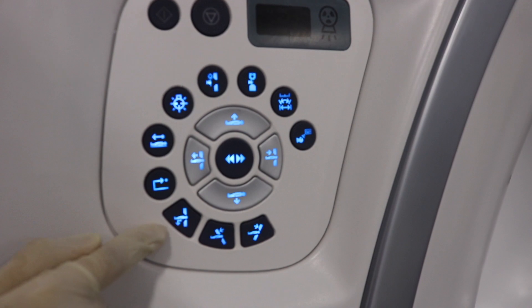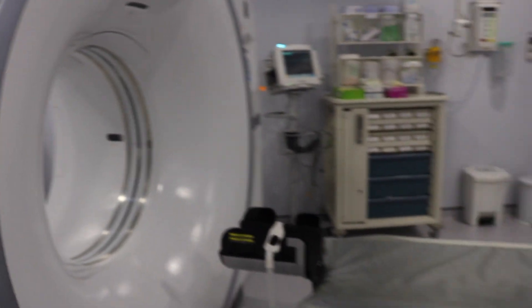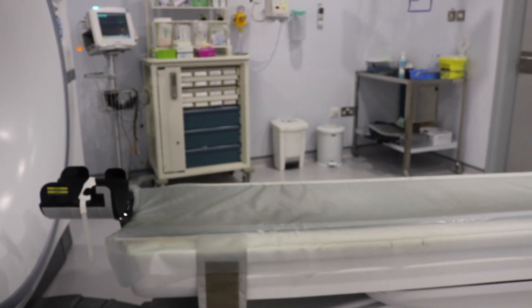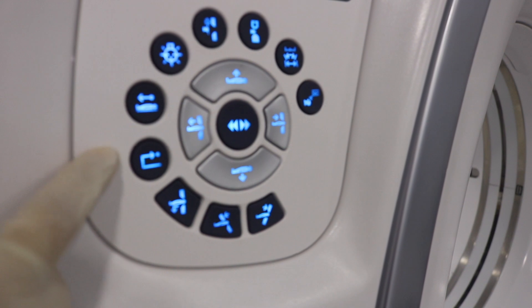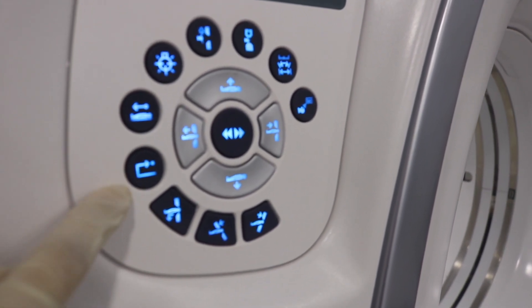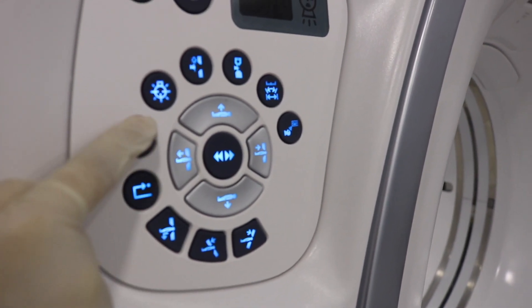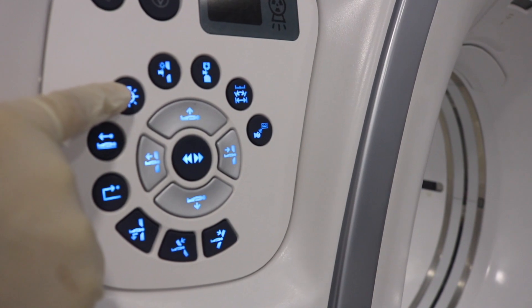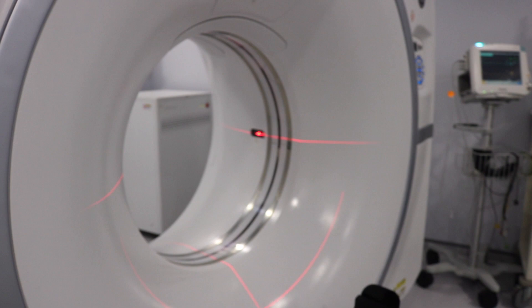This button is for moving the patient table down. This button is known as the e-stop reset button — it restores power to the gantry and table. You have the cradle lock release button, which lets you freely move the table with your hands. This is the light indicator button; if you press it, you can see the lasers in the gantry.